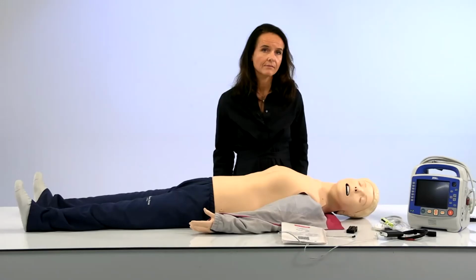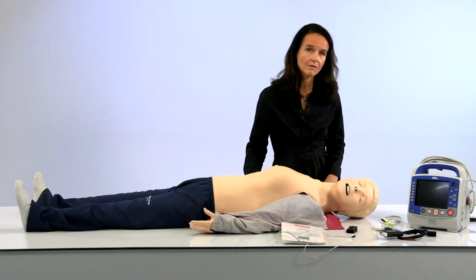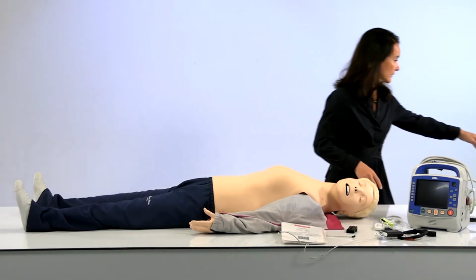So I do want to switch gears a minute with this question. We do have a question about the differences in the lungs and how those are used with the standard head versus the airway head, since you covered the airway heads quite extensively. Yeah, I have a lung here.